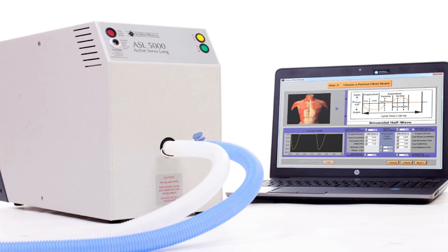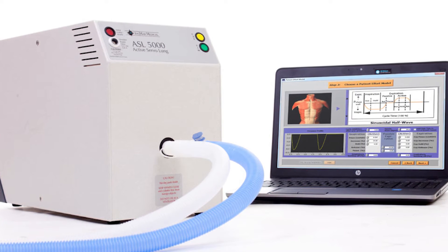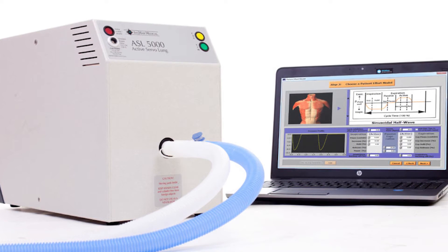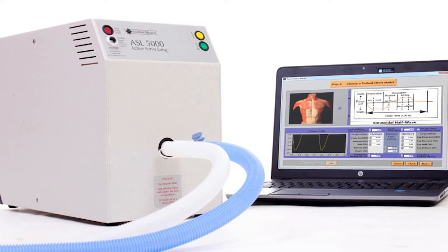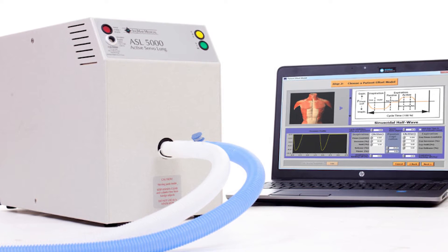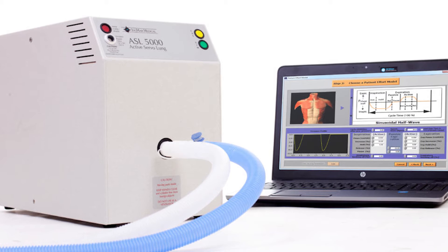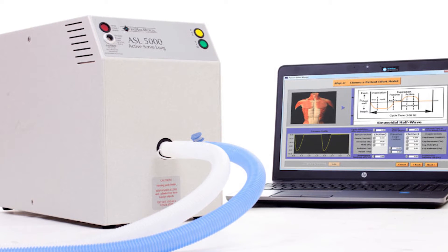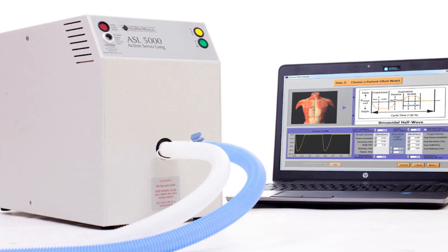To illustrate the importance of expiratory minus inspiratory flow, we measured the VPEP on a human lung breathing simulator. We used a tidal volume of 1200 cc's with a 1.5 second inspiratory time and 0.8 second breath hold.